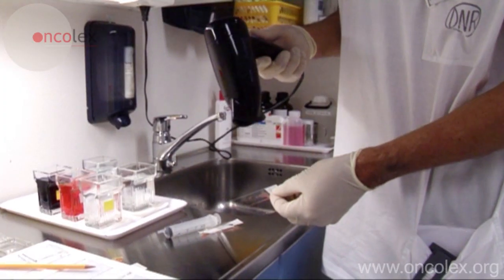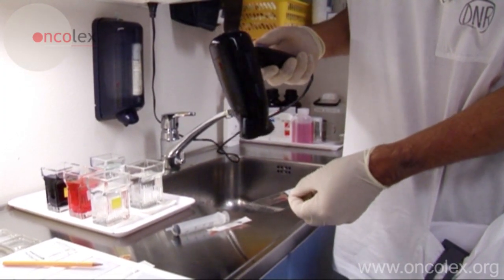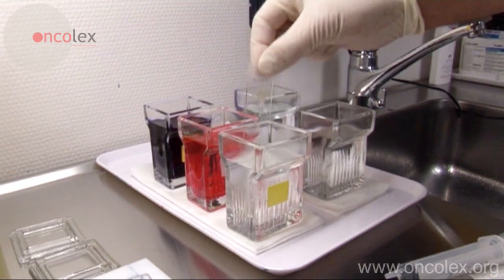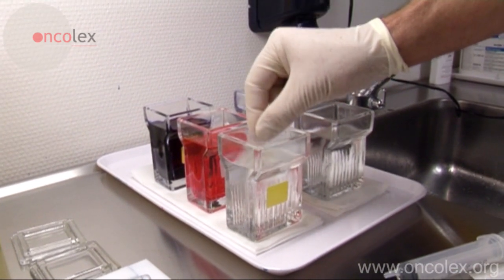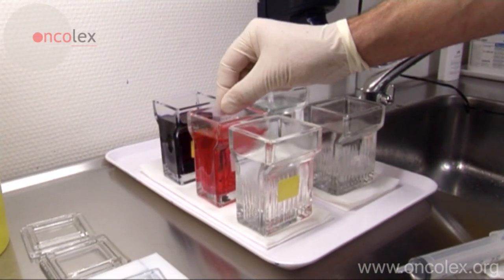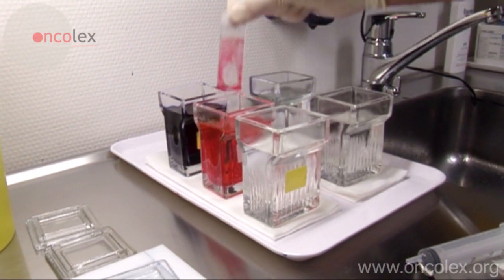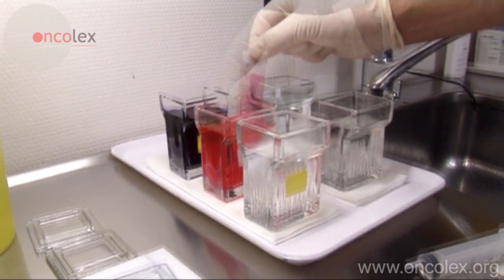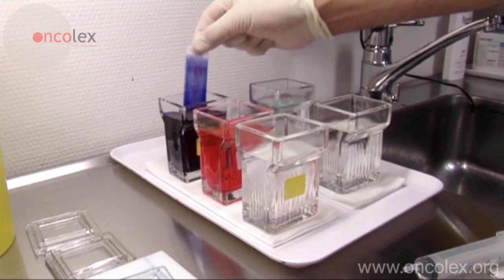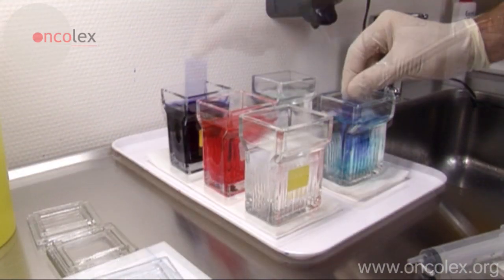The material is dried under a fan before staining. The material is first dipped five times in fixing fluid with methanol, then three times in the first staining bath and six times in the second staining bath, before rinsing in two baths of distilled water.